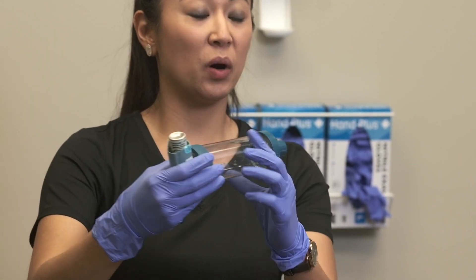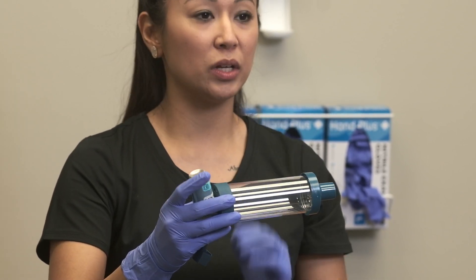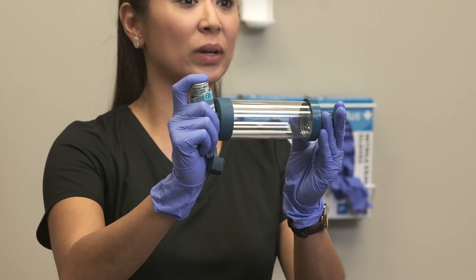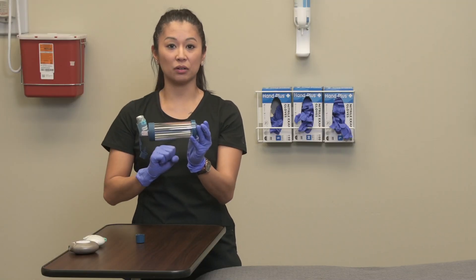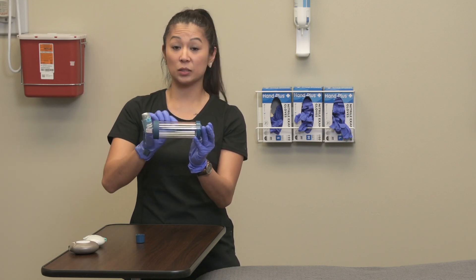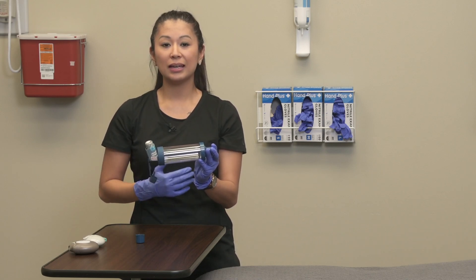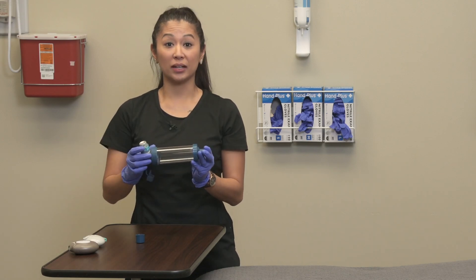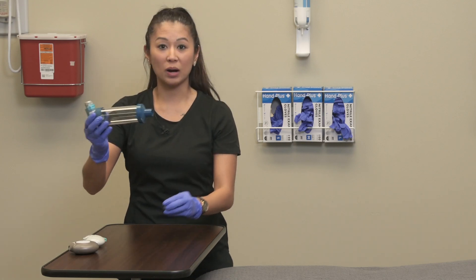Now here is the spacer. Notice how nicely it connects to the mouthpiece — this is the piece the patient will use. When we give it a pump, the spacer traps the medication so we don't lose it into the air. It keeps the medicine in there a little bit longer, giving the patient more time to slowly inhale more of the medication. This is why a spacer is really beneficial.